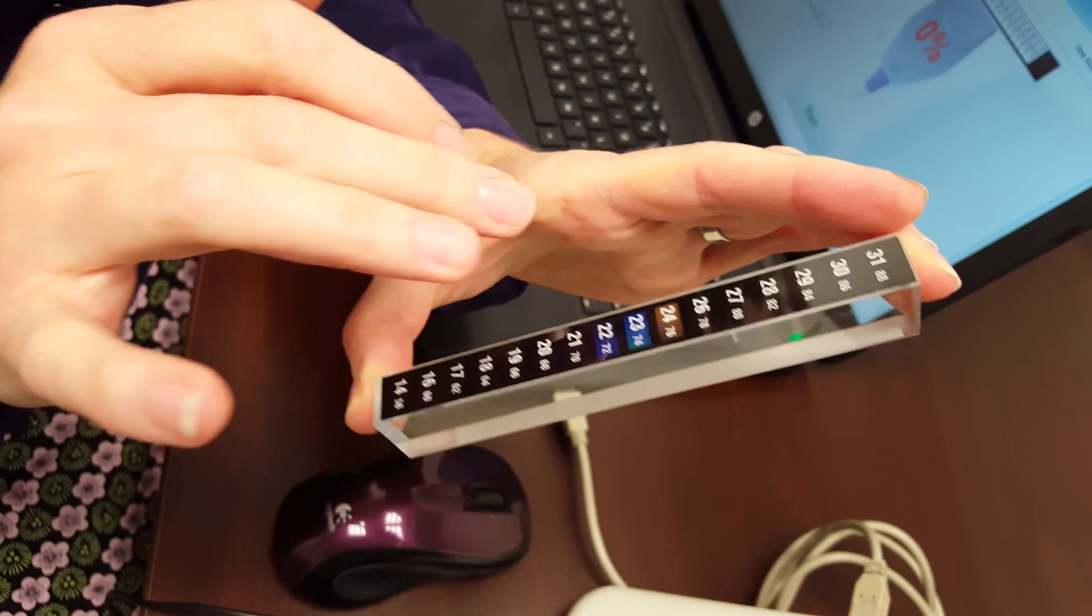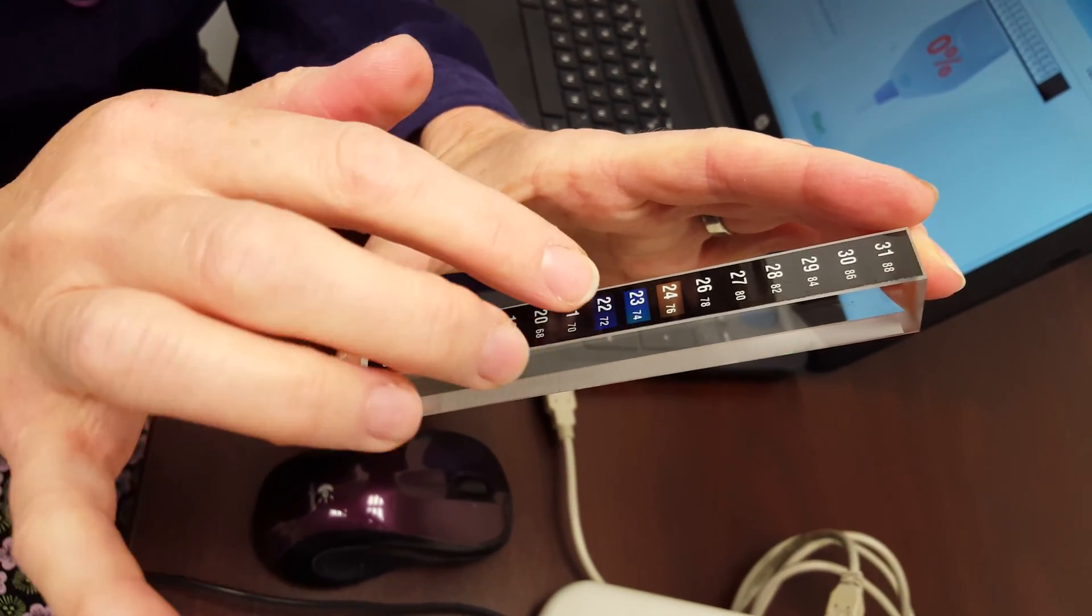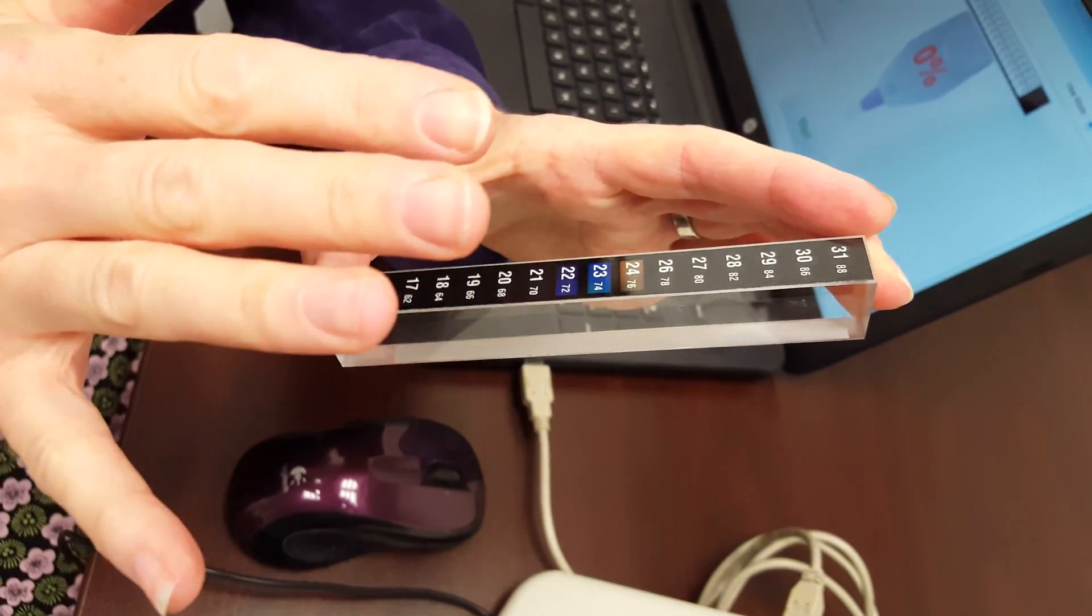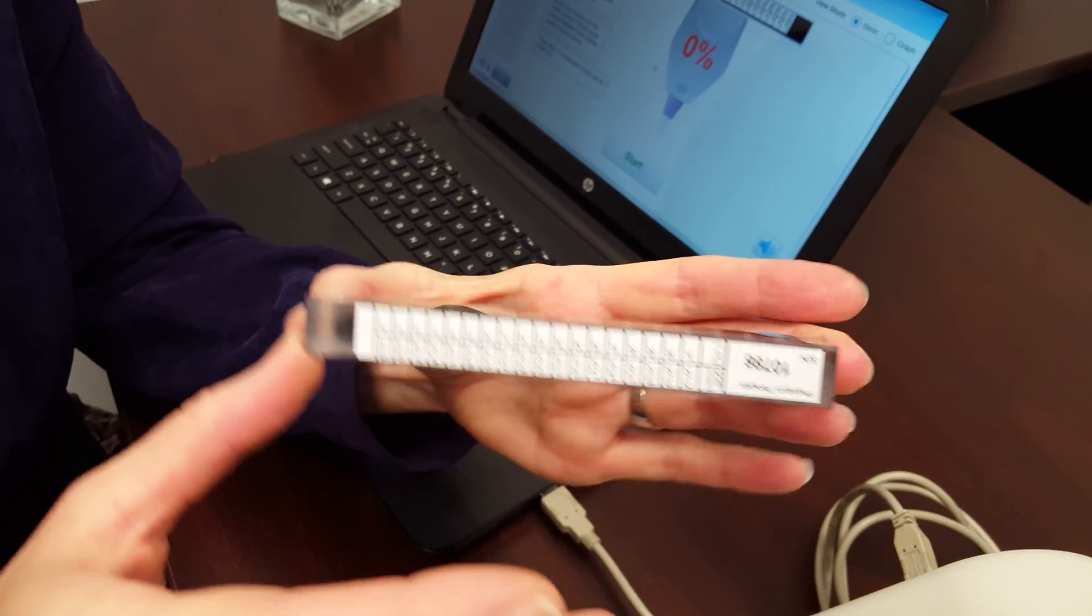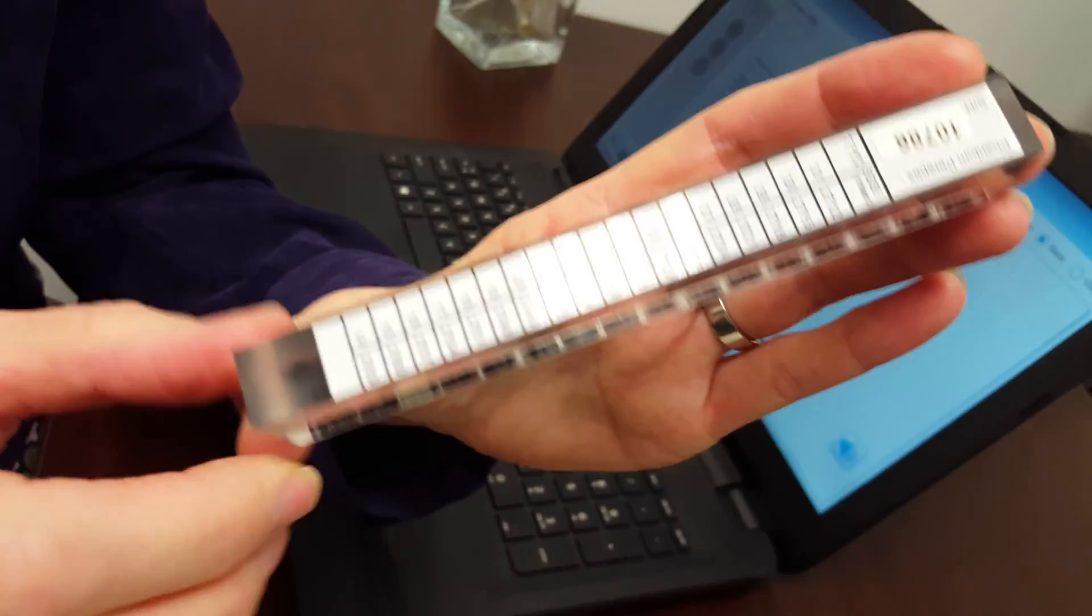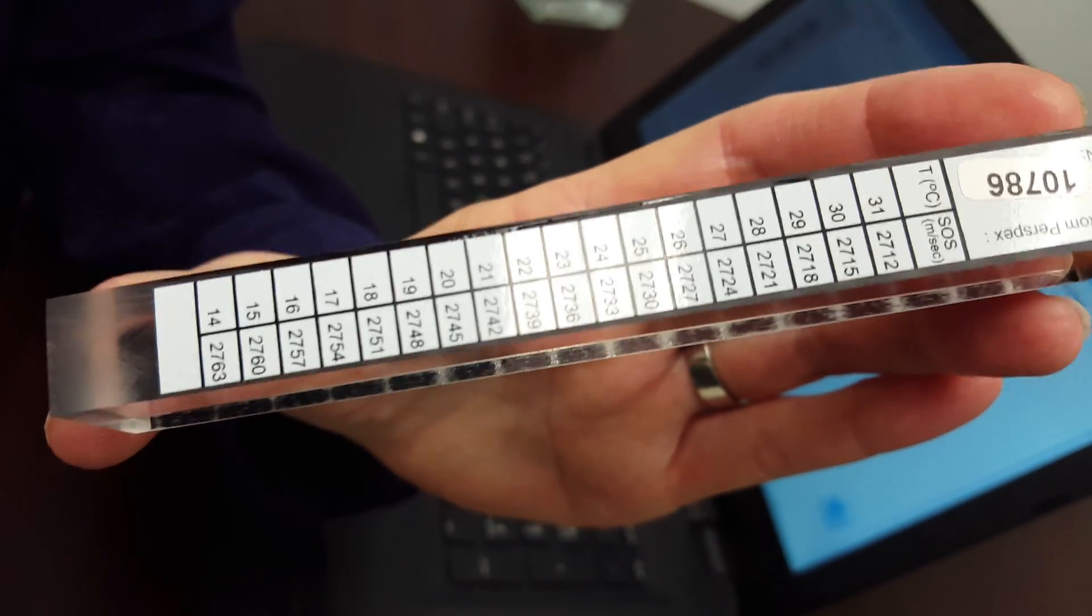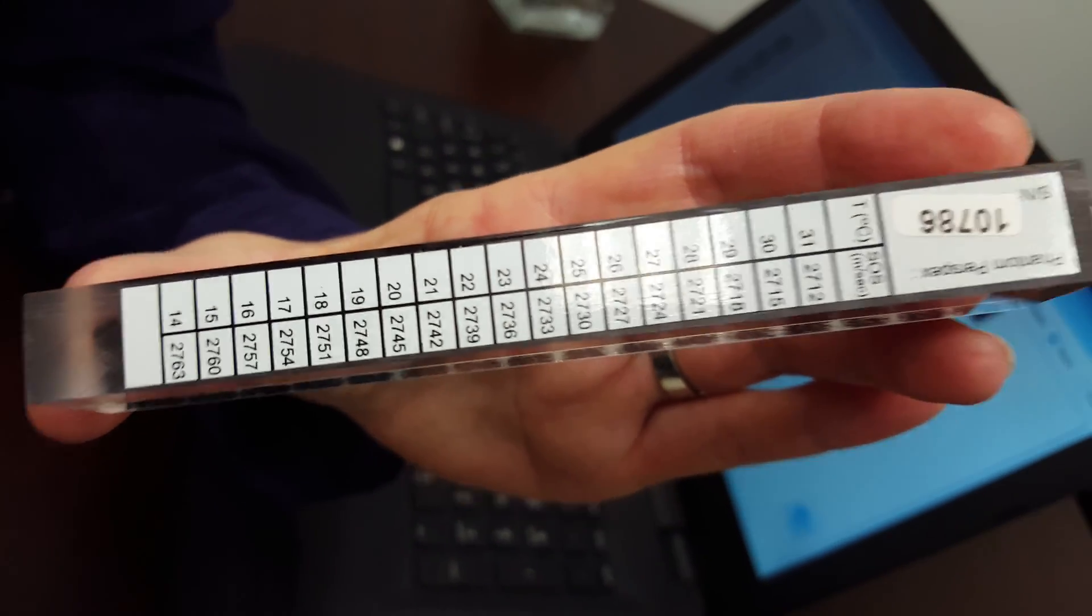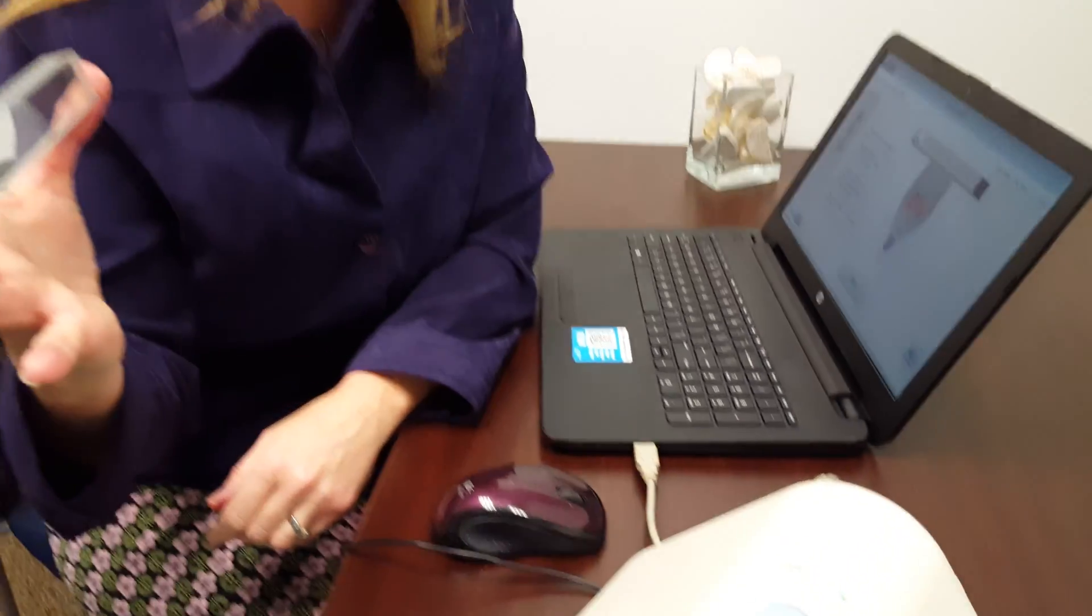Here the 23 Celsius and 74 Fahrenheit shown here, the temperature, and then on the other side you have a corresponding four-digit number. You'll see the Celsius and the corresponding four-digit number that you'll type in, and that's one number that you'll need to type into the software.